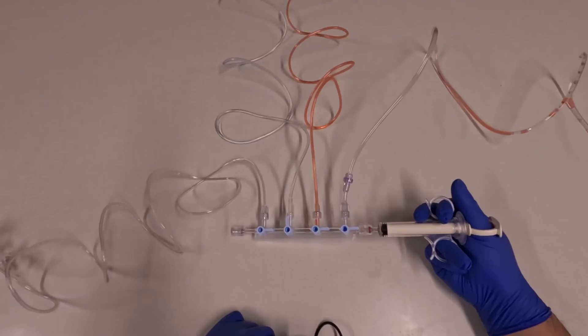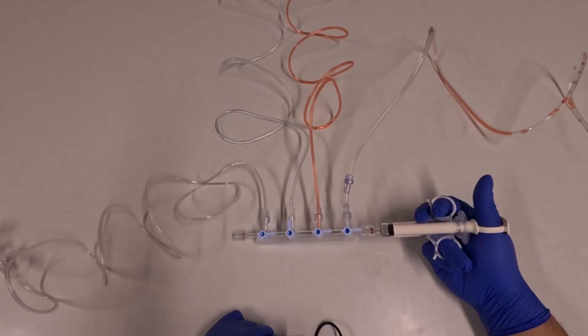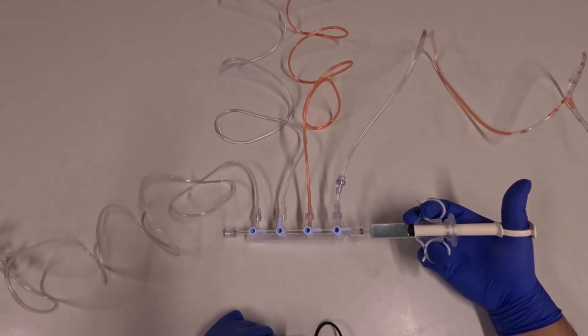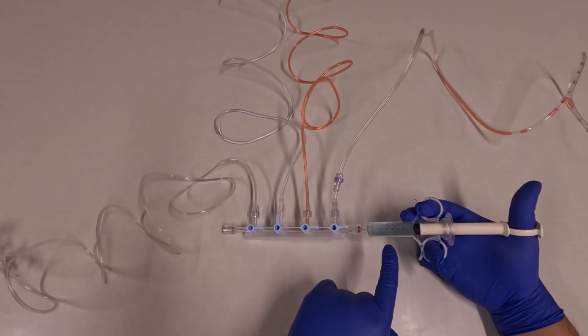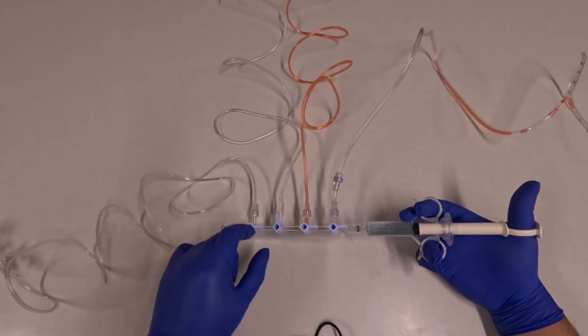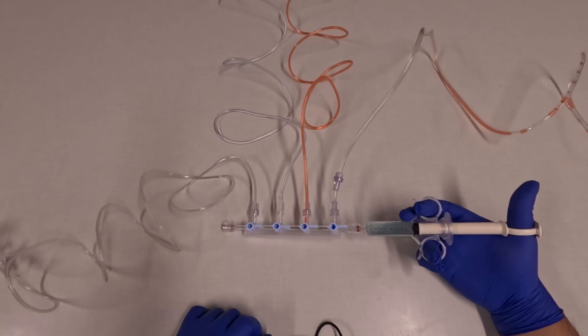If I push back in this position, it'll push back into the fluid syringe. Now here, I've dyed the fluid blue so that you can see it better. You can see that the fluid three-way stopcock is pointing up, so I pulled fluid into this stopcock.